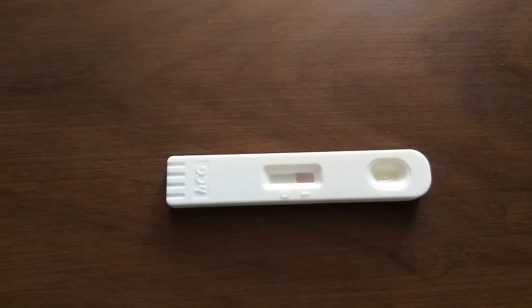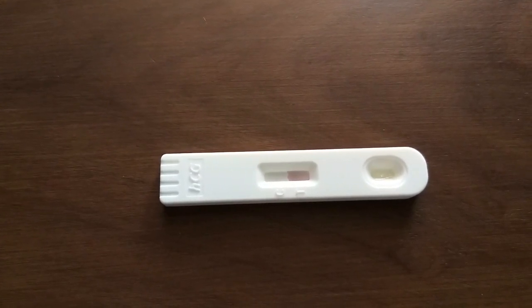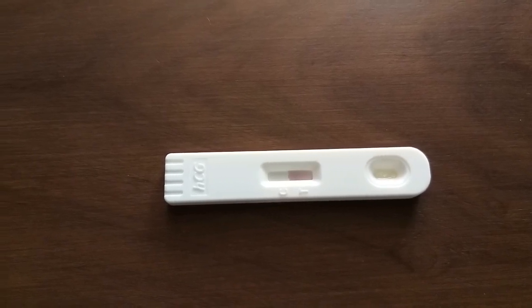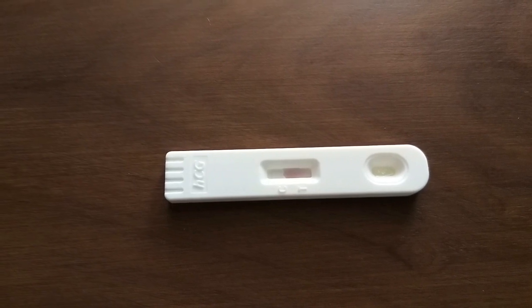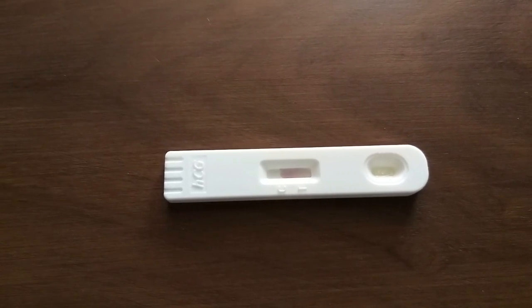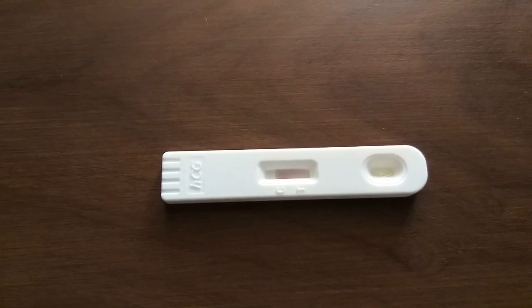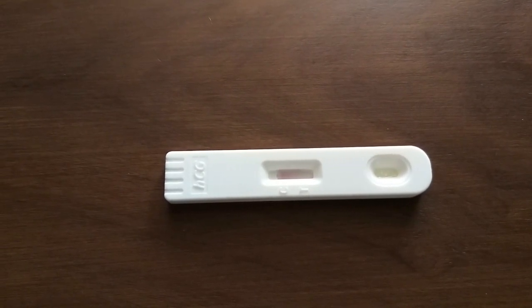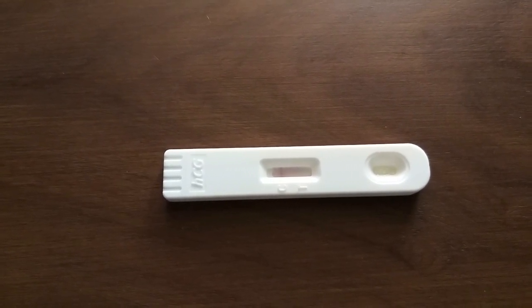If the test is positive, you will get 2 pink lines on the Urine Pregnancy Test Kit. If you get only 1 pink line on the kit, the test is negative. If you get no pink line on the kit, the test is invalid and you need to repeat the test with a new kit.